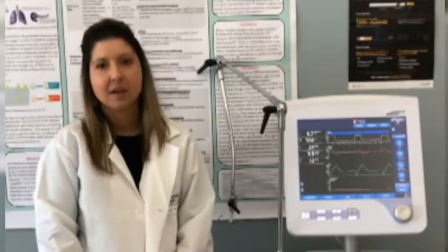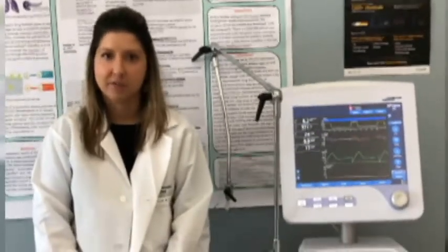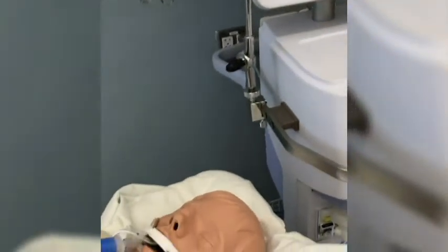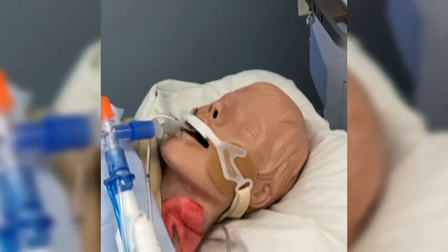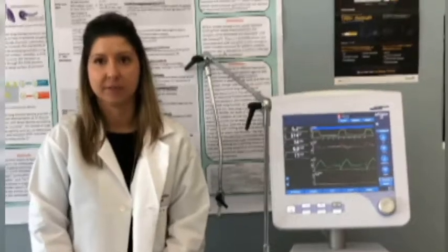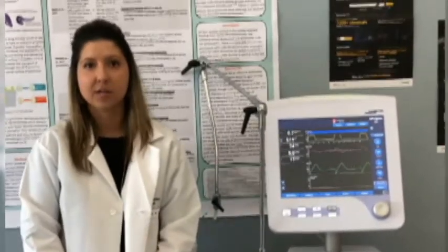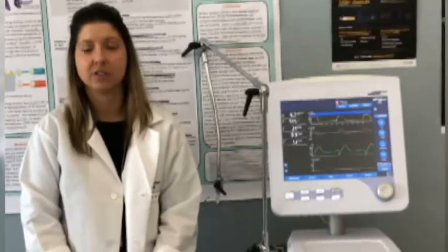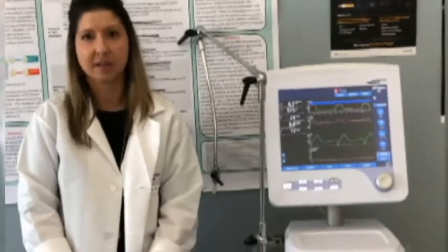There are many reasons somebody may need a ventilator. A breathing machine is something that is used in many different scenarios. But in the case of COVID-19, the body is not usually getting enough oxygen into the lungs. So respiratory therapists can act as the lungs while the patient is recovering. In some severe cases, sometimes patients may need the ventilator for weeks. And it's important to note that the ventilator does not cure the disease, but it does help us manage it.